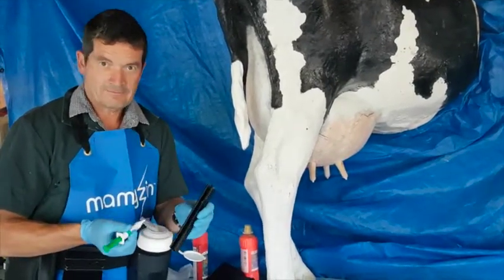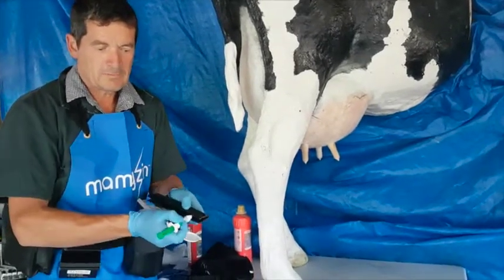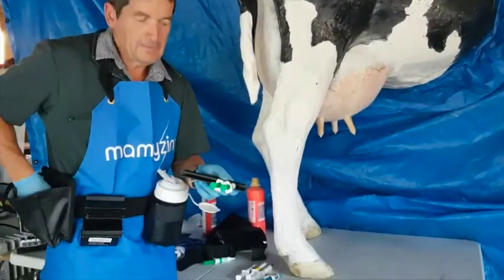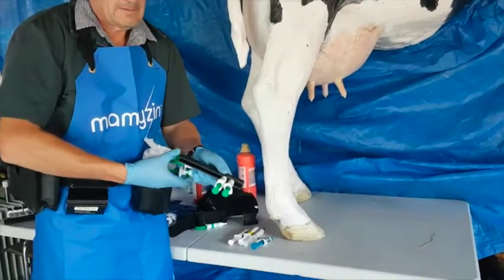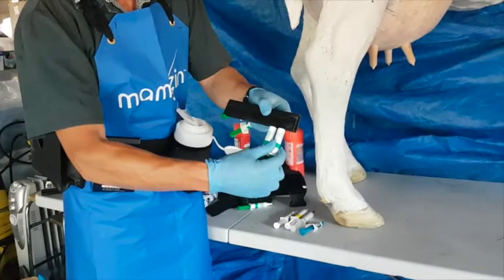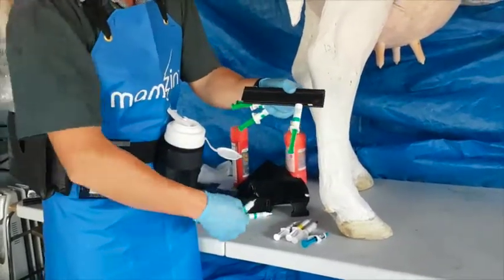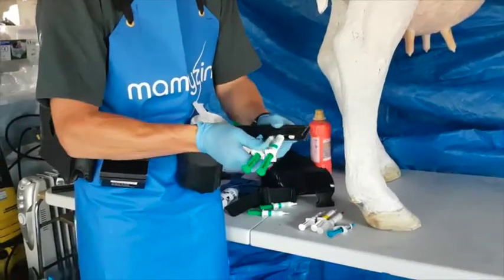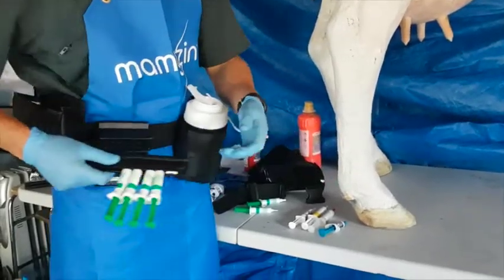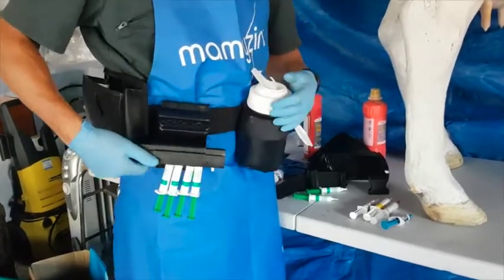Right at the heart of the EZ-Treat dry cow system is the plastic insert, and we can put our teat seal tubes in one by one, up to eight at a time. Once they're in there, the next thing we do is take the cap off, but not until we put it in our belt. If we have multiples of four — four or eight — we can easily keep an inventory. These click in there on my hip and they're ready to go.